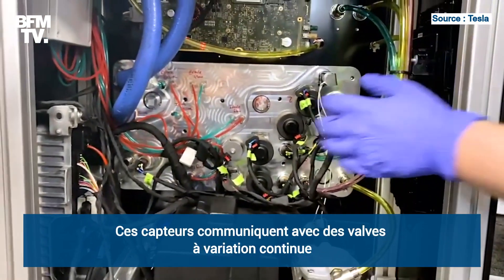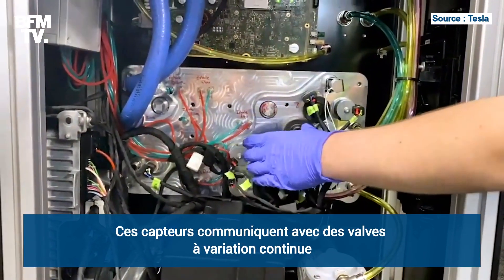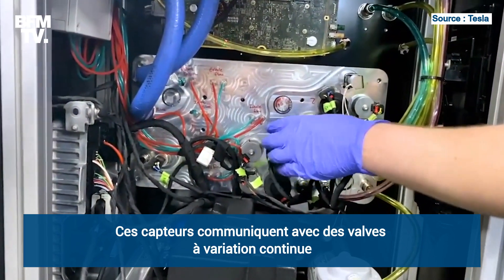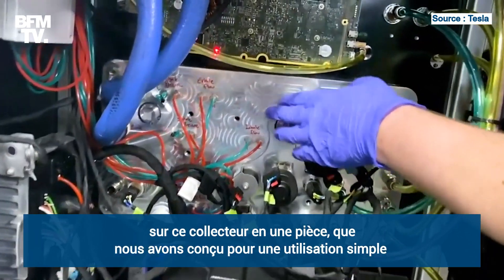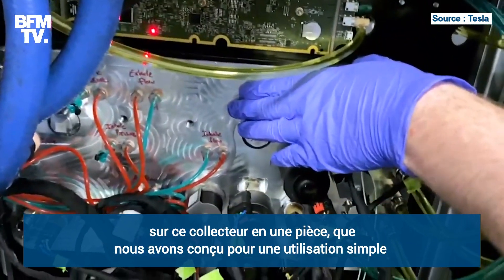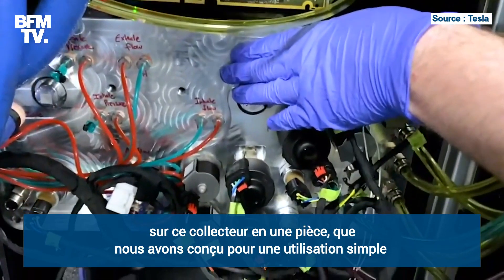These vehicle controllers talk to these precision variable valves on this single-piece manifold, which we designed to be easy to put together.